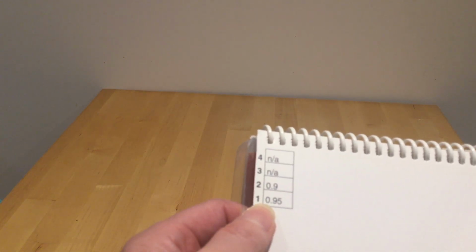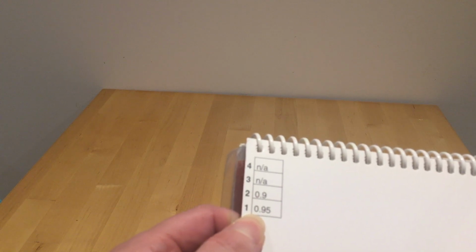Okay, so the next one we're going to flip over. Just let you see the tab. It's got 24 in bold. You can see that now on the right. But remember, this is about LogMAR. And flip it over. We've got 2 pictures here. And again, in our corner, we've got here. If they get 1 correct, then the acuity is 0.95 LogMAR. If they get 2 correct, it's 0.9.